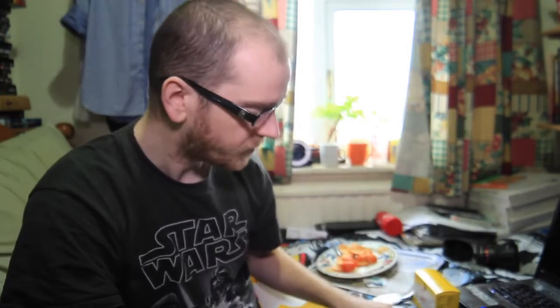First impressions so far — this looks actually pretty good. Abbott Laboratories have done well. One thing I'd say is it would be cool if I could pair it with my iPhone via Bluetooth or Wi-Fi so I don't have to carry this separate reader around. And it'd be cool to integrate it with a Fitbit watch so I could check my heart rate and blood sugar from my wrist.